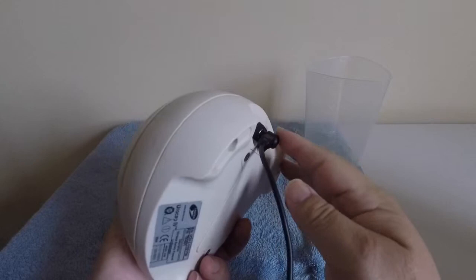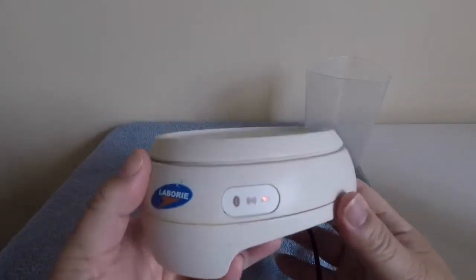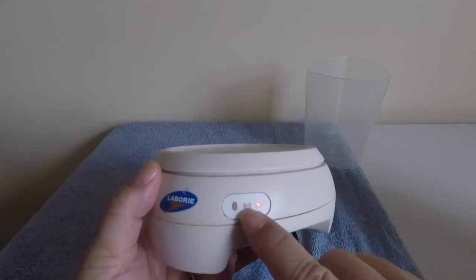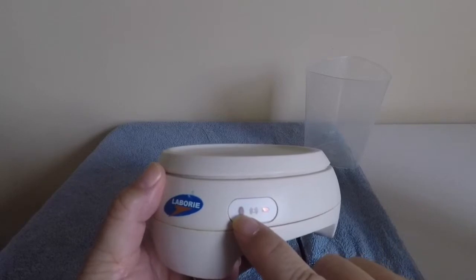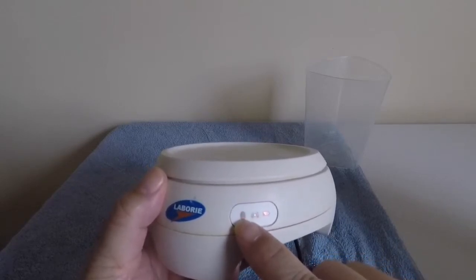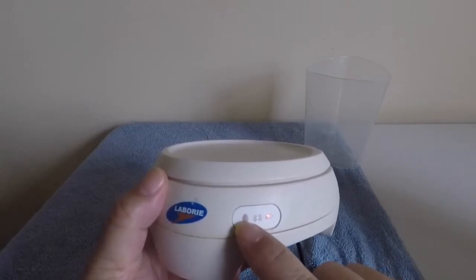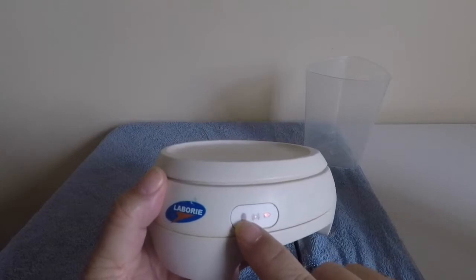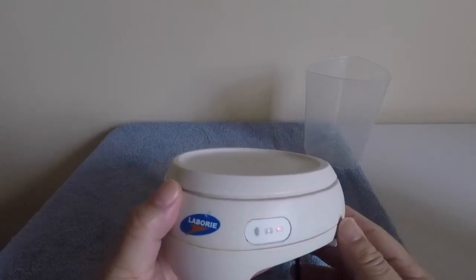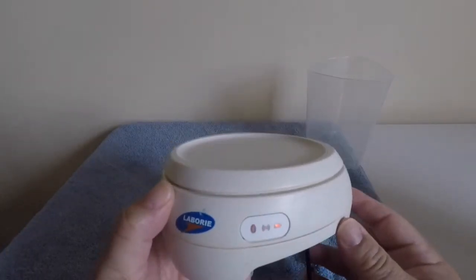The unit is charging right now and we can see our status lights: the battery indicator, the wireless signal indicator, and the Bluetooth connection indicator. It's not connected or paired with a laptop at the moment — if it was paired we would see a green flashing symbol, and if it was active it would be blue. The status lights actually help quite a bit with troubleshooting.